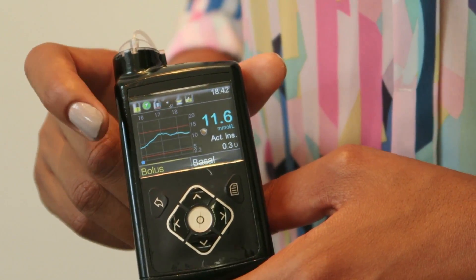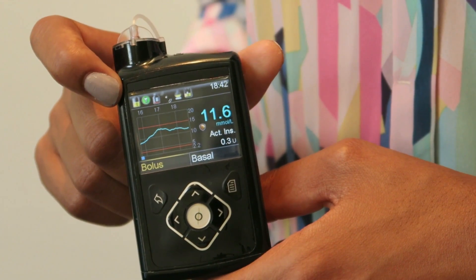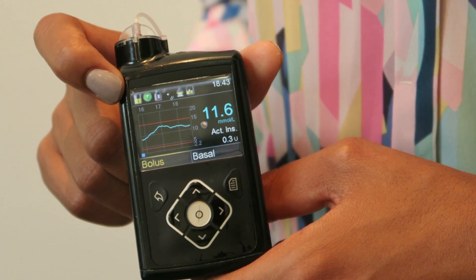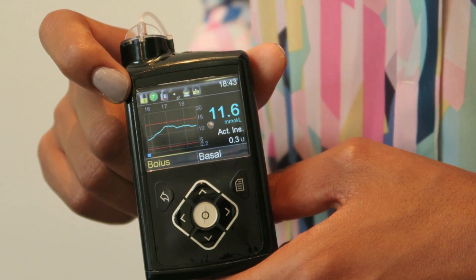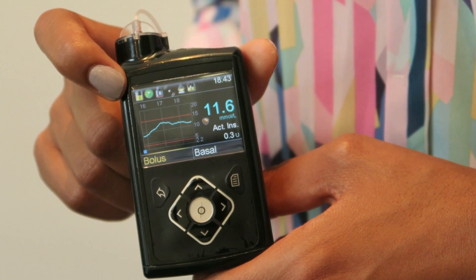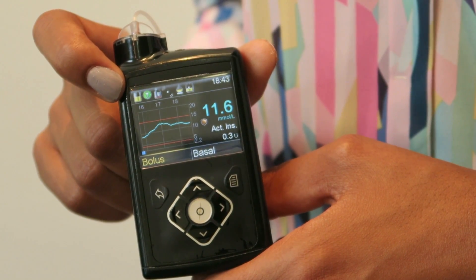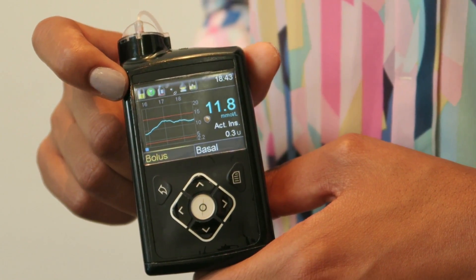Here we've got the bolus and the basal shortcuts that allow you to get to those options quickly. I found that they're the options I use the most in the pump, so it's quite handy to be able to have those right on the home screen.